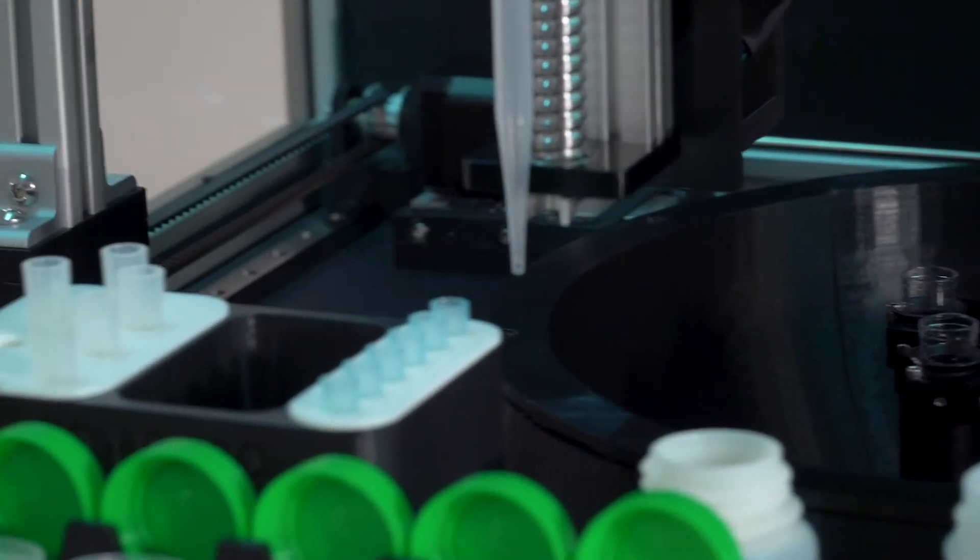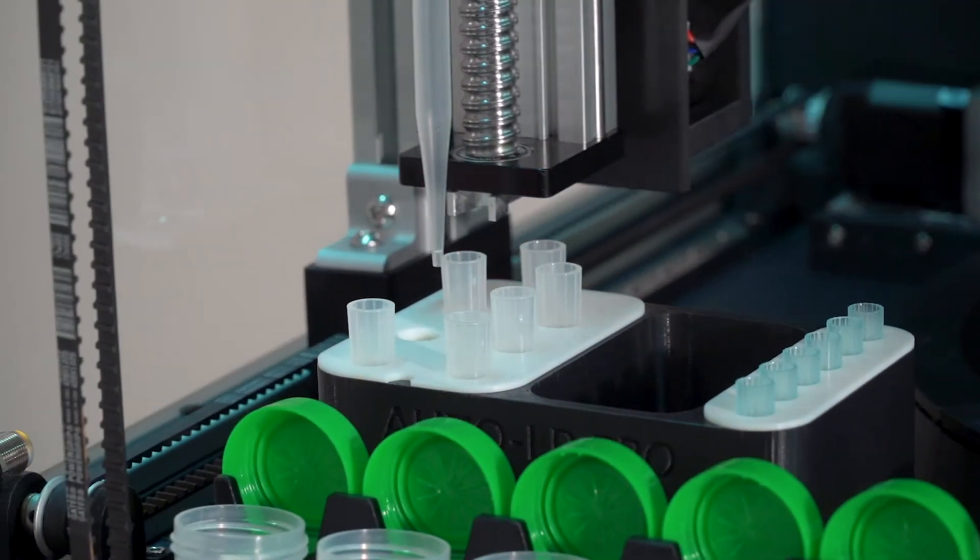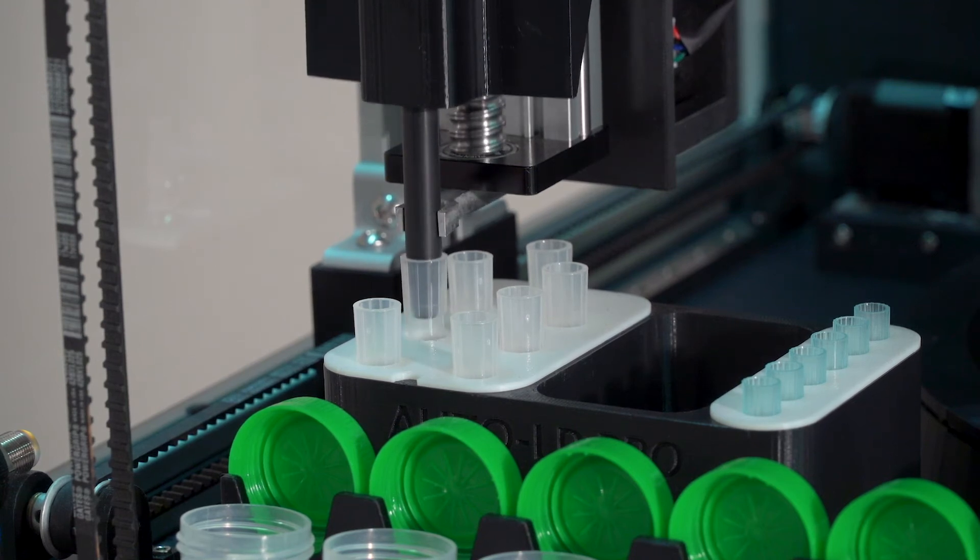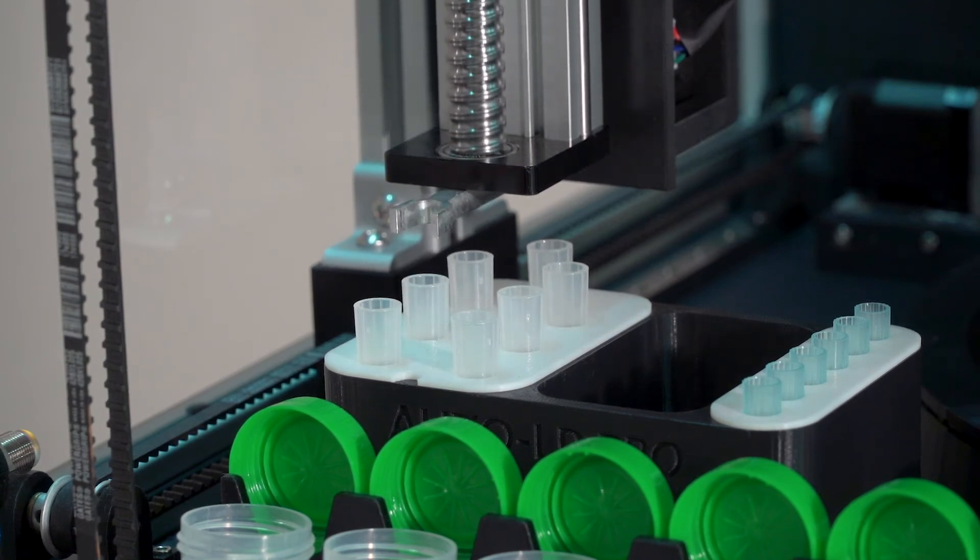After each specimen sample is delivered, the pipette is replaced in its corresponding holder for later use on the corresponding specimen. The holder is designed to ensure no cross-contamination.